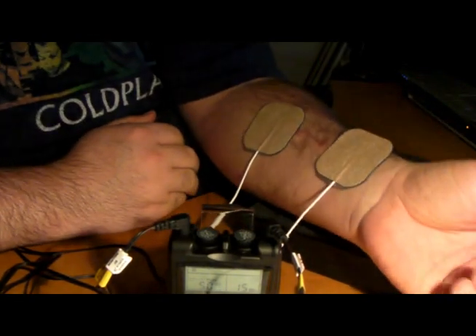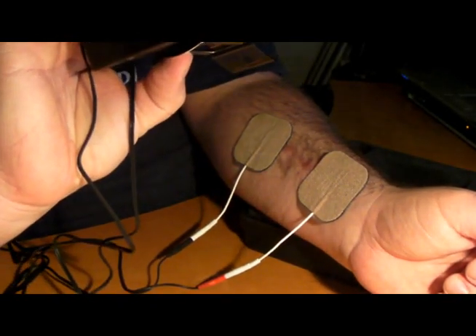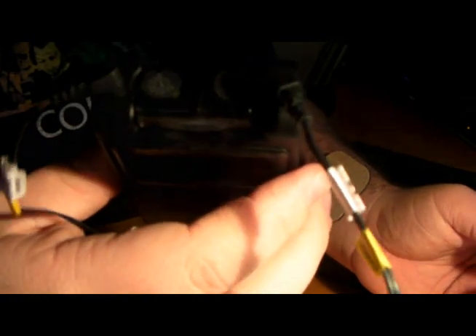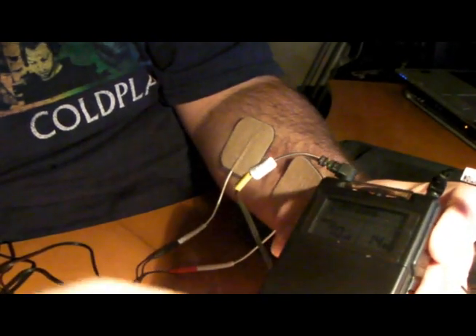They're very good units for dealing with pain, so if you're in a lot of pain I really recommend this unit. It's made by Twin Stim — you can see right there. It's got a little clip on the back where you can clip it onto your belt or inside on your jacket. You can set it for however many minutes you want, and there are about seven different modes you can put it in. These are better than the ones you see on TV, like the Dr. Ho ones. These ones are actually better than what they sell on TV, and you can find them in any medical store that sells medical supplies.